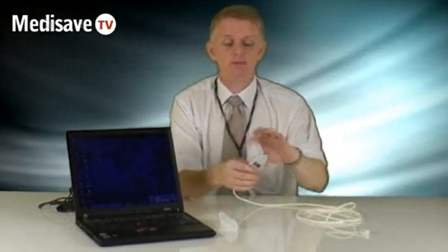It consists of a USB cable which attaches to your PC and a disposable patient mouthpiece which goes on the end of the cable like so.